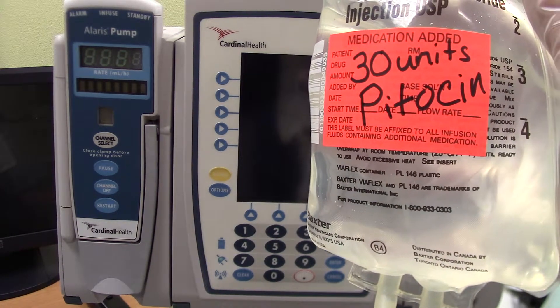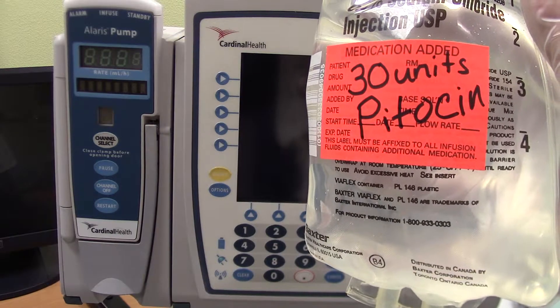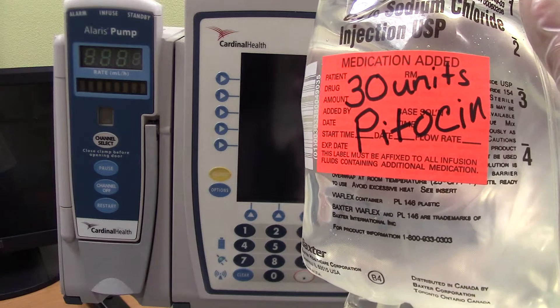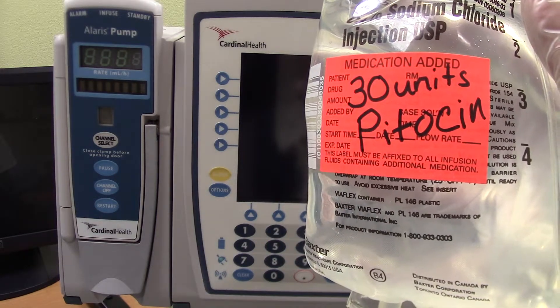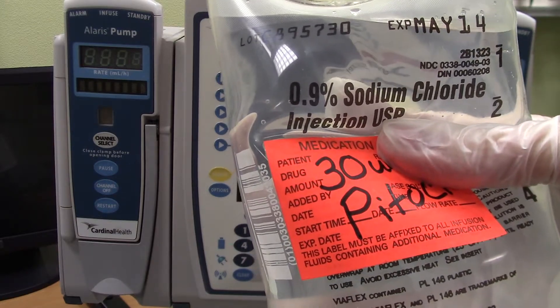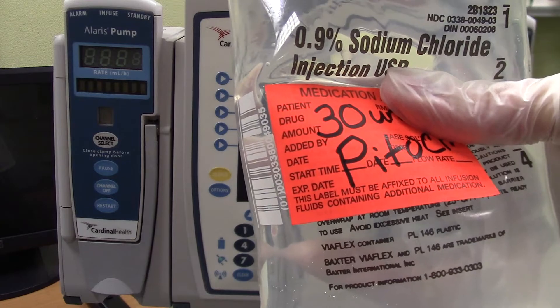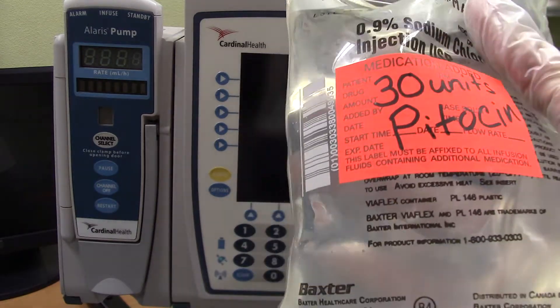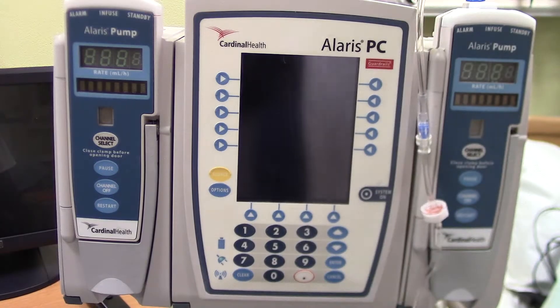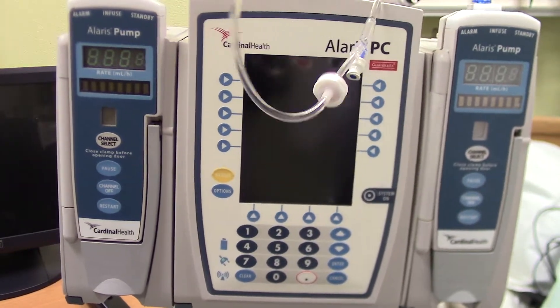Let's program an Alaris pump to run a Pitocin infusion for an L&D patient. Here we have a bag that matches the protocol of 30 units of Pitocin and 500 milliliters of normal saline. I've already primed the tubing, made sure that the patient's ID matches with the orders, and I've assessed the insertion site of the IV catheter to make sure that they are all asymptomatic.